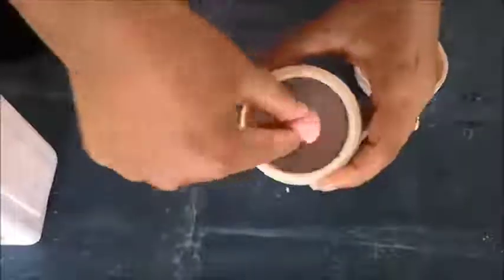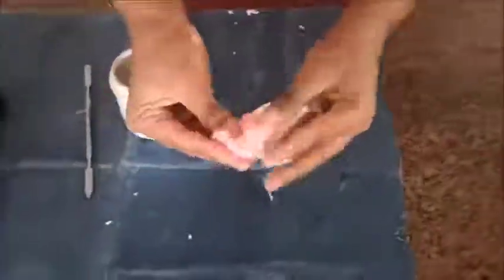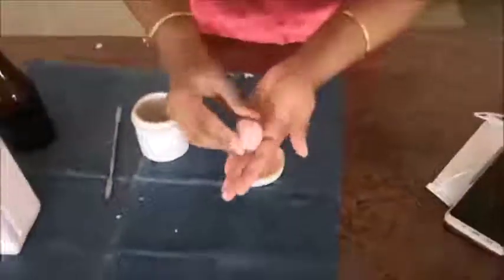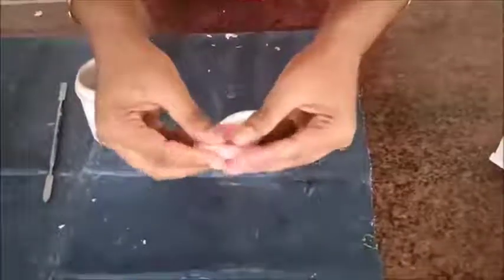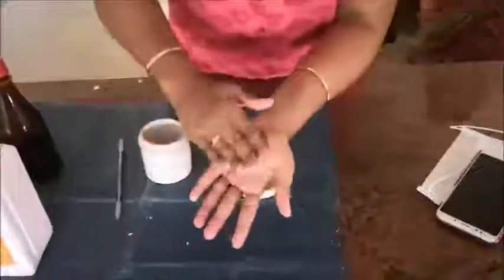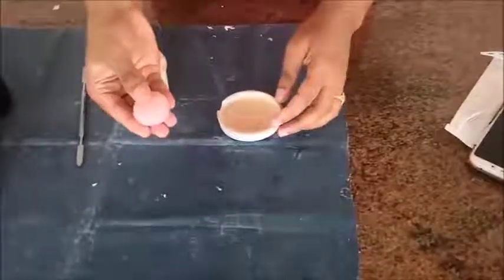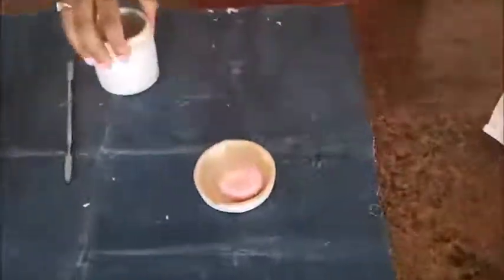In the gel stage we can see the mass is not adhering to the acrylic jar — this is the actual workable mass. This is the working stage of resin; any molding or shaping can be done at this stage. It appears like a dough-like consistency, hence the name dough stage. This is the third stage of polymerization, that is the dough or gel stage.